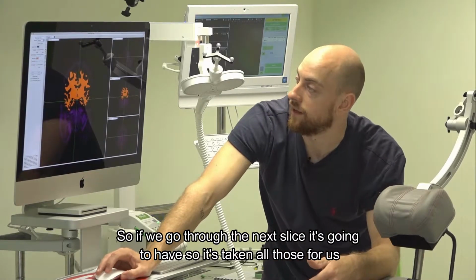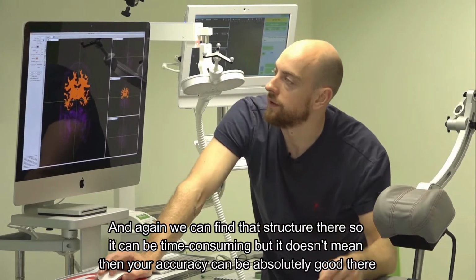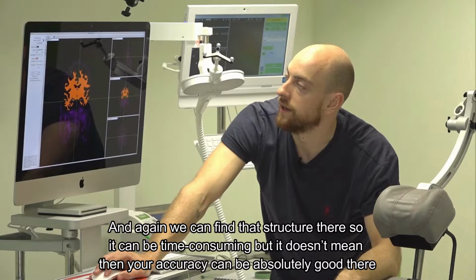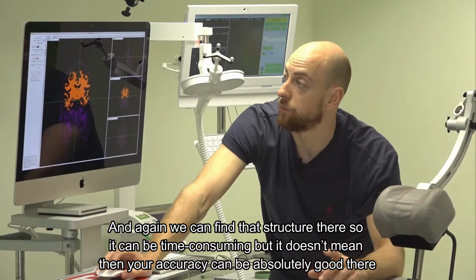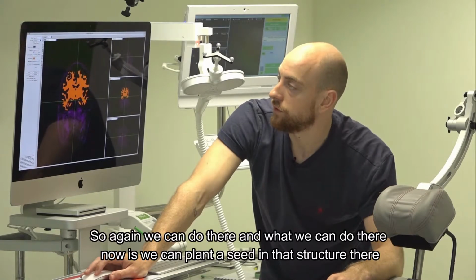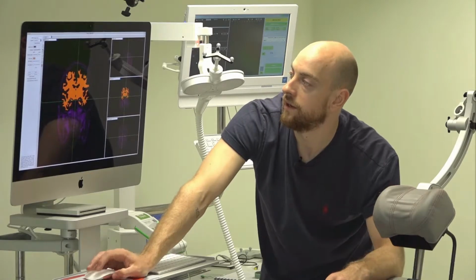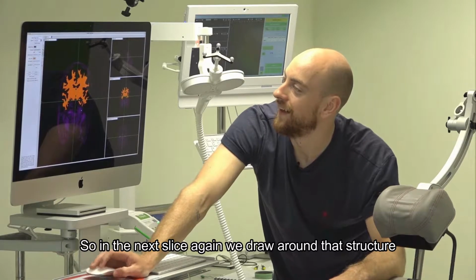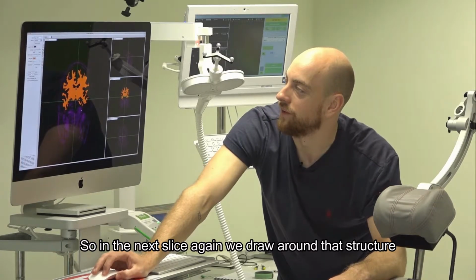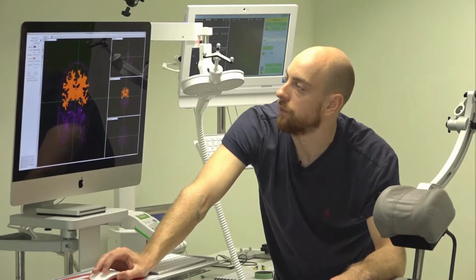You can then take that back through. So if we go through to the next slice, it's taken all those for us, and again, we can find that structure there. So it can be time consuming, but it does mean your accuracy can be really good there. And what we can do now is plant a seed in that structure there. So in the next slice, it's not done it. In the next slice, again, we draw around that structure. And we want to fill that.